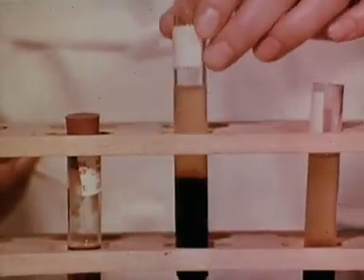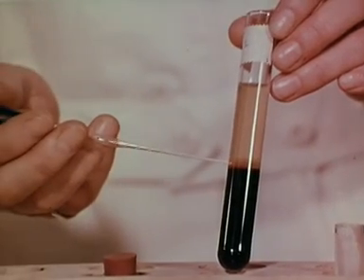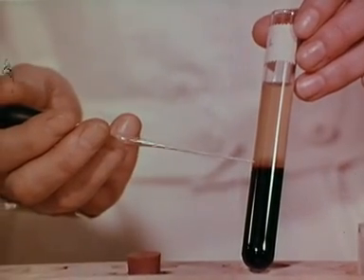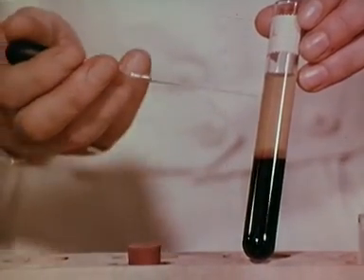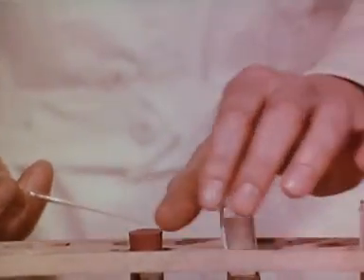If blood mixed with an anticoagulant is left to stand, it separates into two parts. The red cells settle at the bottom, leaving above them the fluid part called plasma. Without an anticoagulant, the blood clots, and the fluid which separates is now called serum.